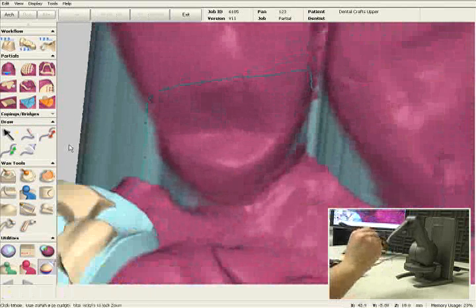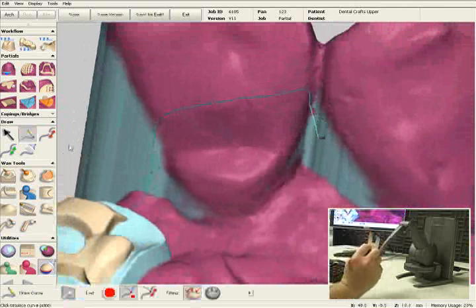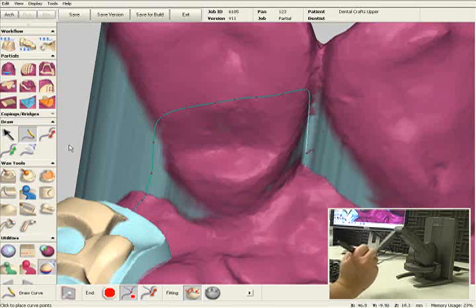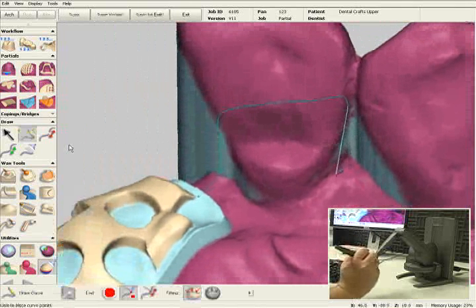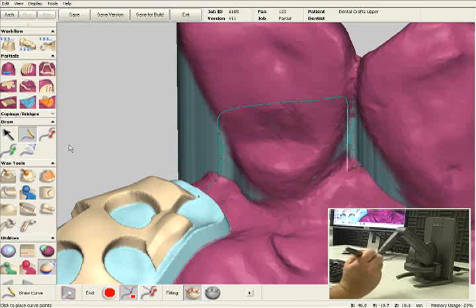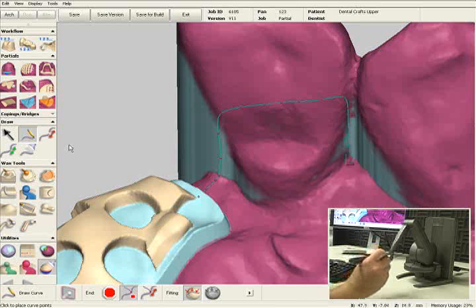For the purpose of this presentation, I actually left teeth number 2 and 4 without the outline on top of them, so I can show you how to add digital wax manually in the rest seats and the guide plane areas. So I'll just continue outlining my major connector.